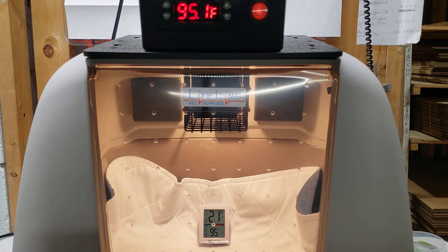Today we're going to go over the controller and settings and where to set everything so that you can get the unit calibrated properly. It's always my suggestion to let the unit come up to temperature, and then between calibration changes we recommend at least 30 minutes — I like to go an hour. I set a timer, go do something, come back and check it again so we can really dial it in. Generally the sensors aren't off far; the distance between the sensor on the back side of the heater and the floor are almost identical if you measure those out. So let's get started.